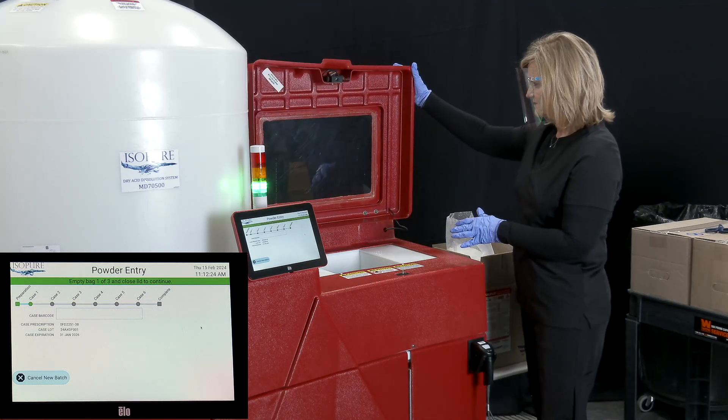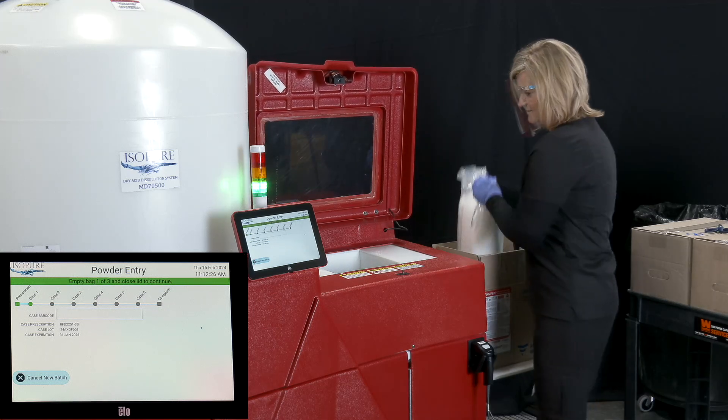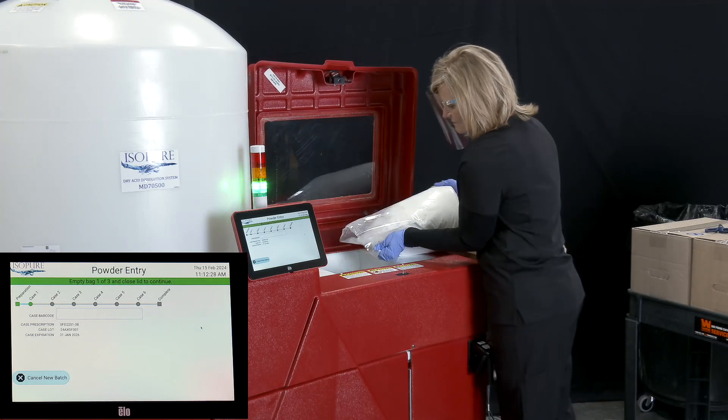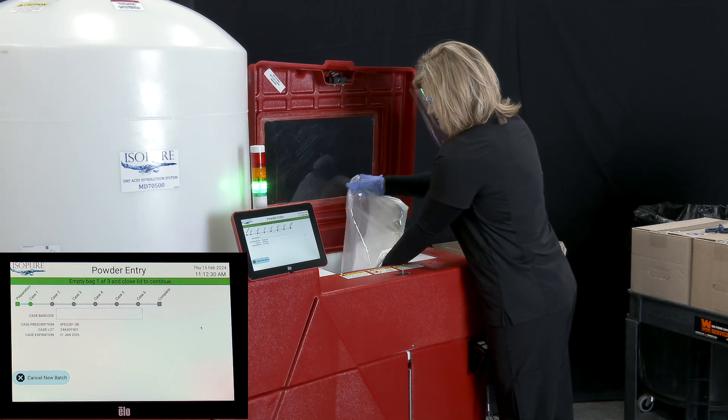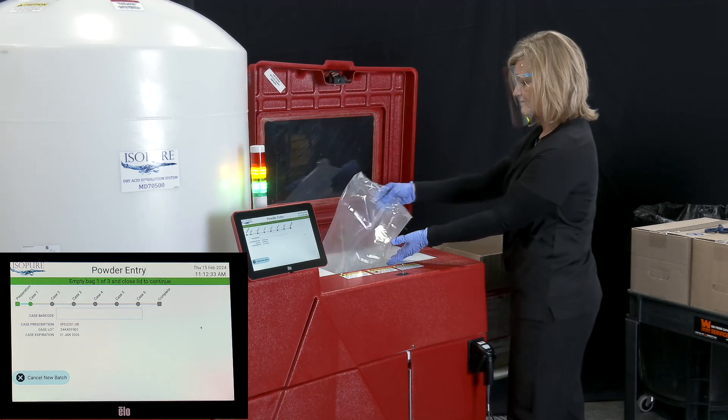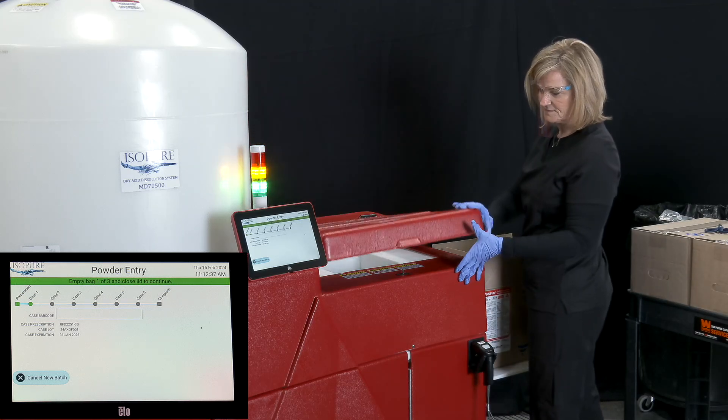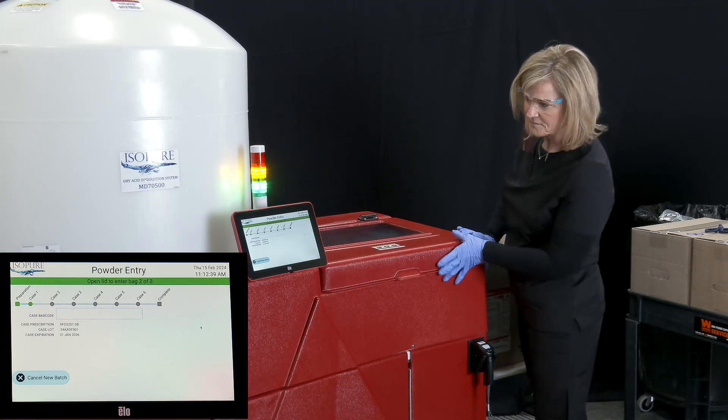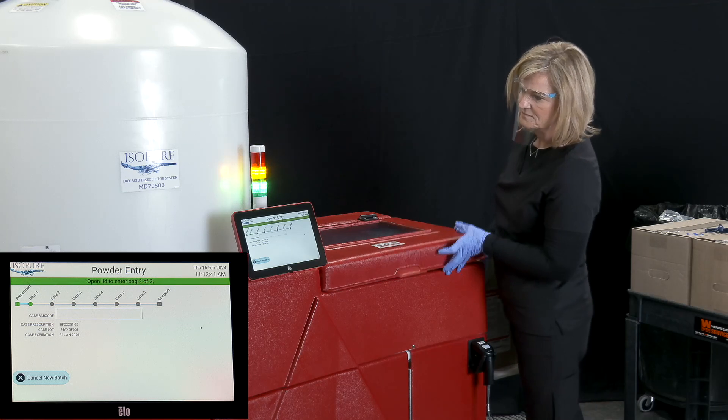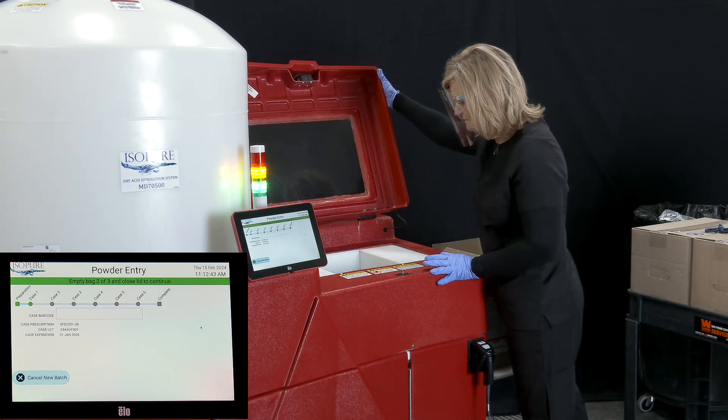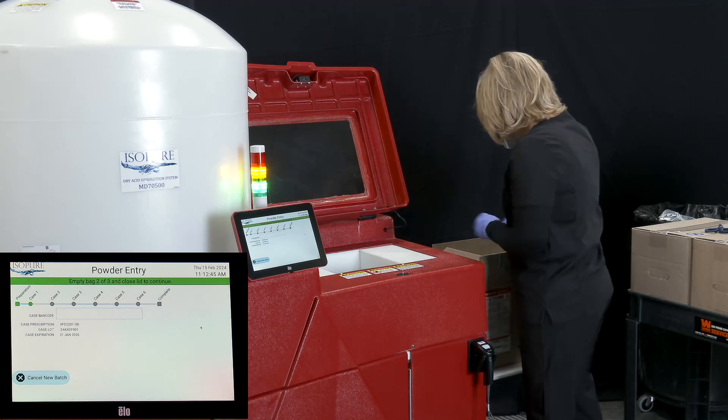Once case is successfully scanned, the prescription information will appear on the screen and you will be prompted to open lid and add one bag from the case to the hopper. When you open the lid, you'll notice water in the hopper already. This is intended to help reduce the amount of dry acid powder blown back into the air.